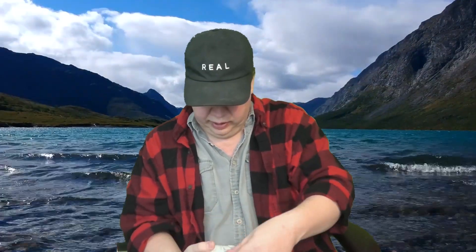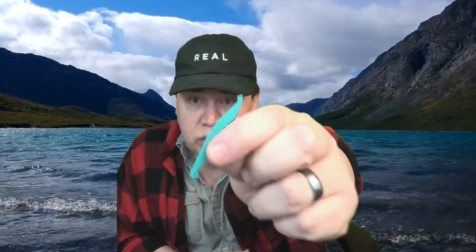You're going to need your rubber bands. I've got my rubber band bag — there are 100 rubber bands in here. They gave me this little hook tool, but you don't need that because after the first day you'll just hook the rubber band on your hook, stick it to the back hook, and the rubber band will just roll off your finger. Every once in a while you'll shoot a rubber band across the room — so that could be fun.